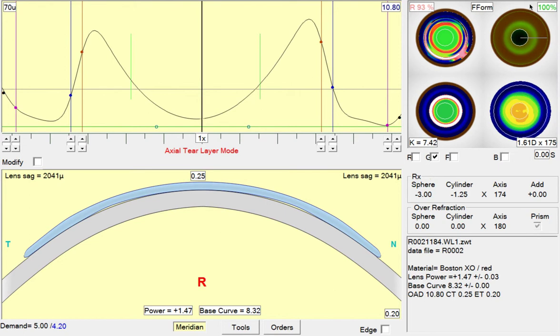In G-Sim, we'll go into 50% mode and see where our sagittal depths currently are. We're at 823 and 1768.